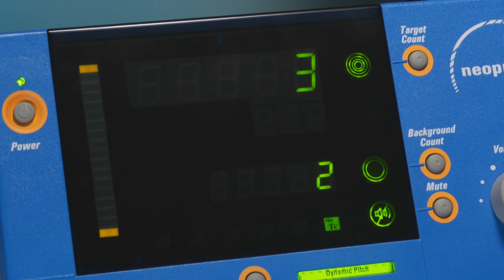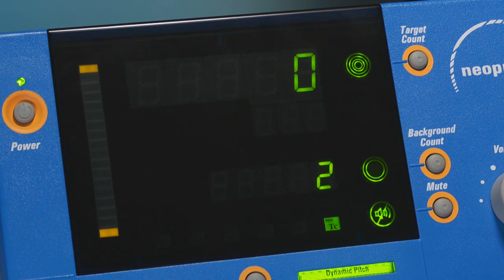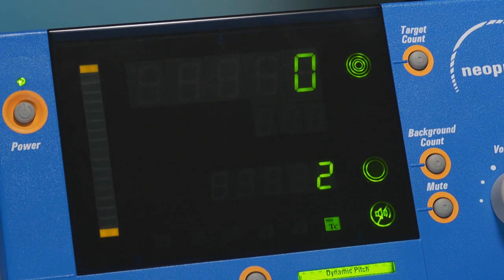In this mode, the system simultaneously detects and processes counts from the technetium and I-125 energy ranges. This mode may be useful during attempts to locate these two different radionuclides during the same procedure.